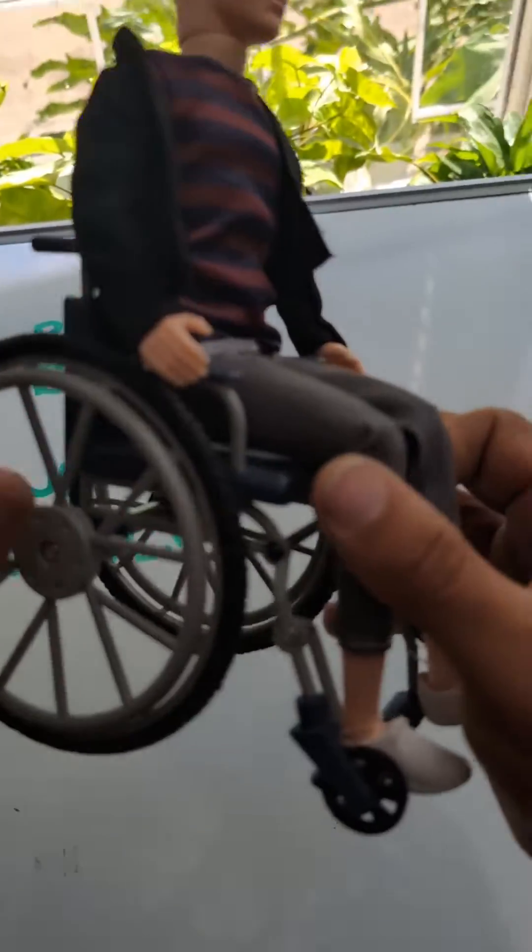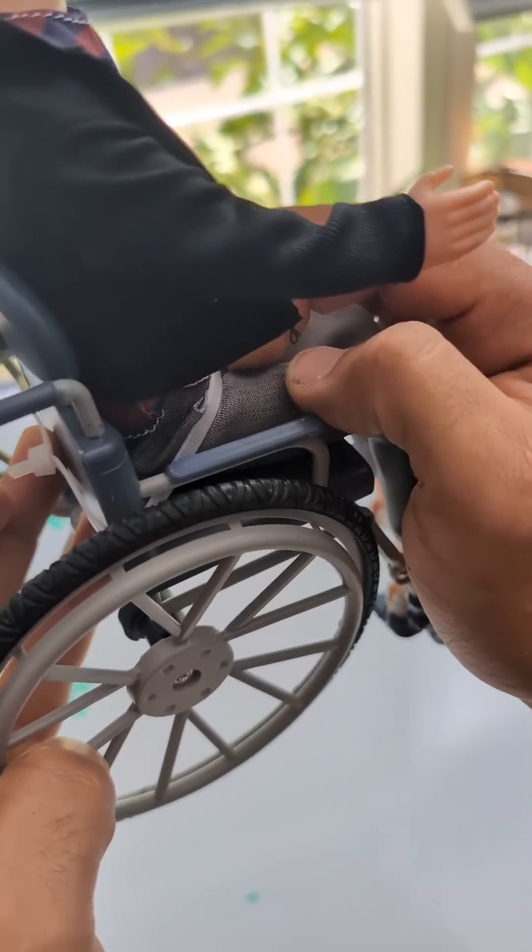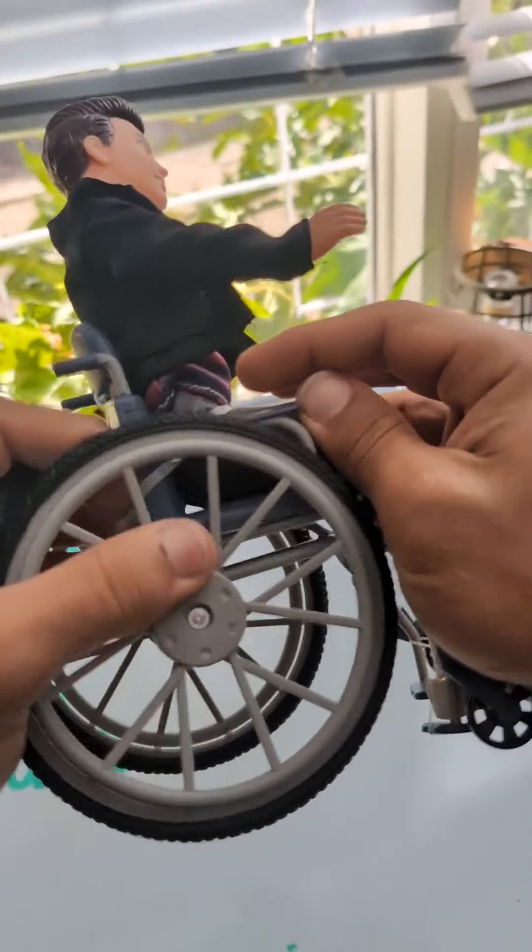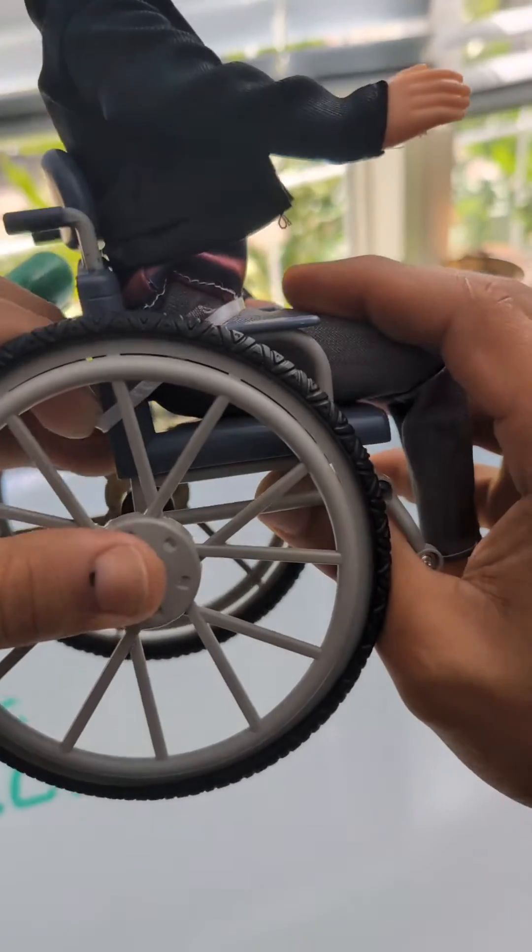Number two is the angle. Now, this is probably the most common thing that I see done wrong, especially with our little guy over here. Do you see how the belt is kind of mounted? Well, let's just say if it was down here, it'd be at a 45-degree angle.